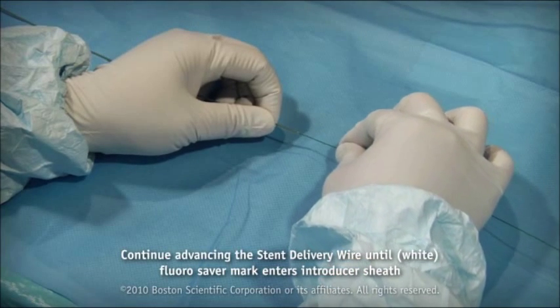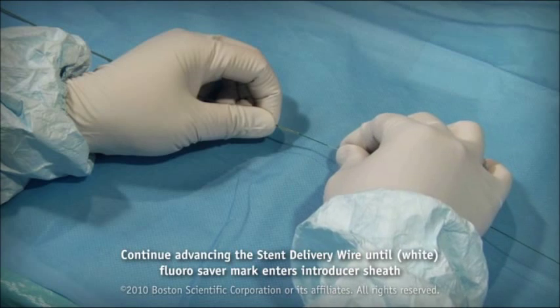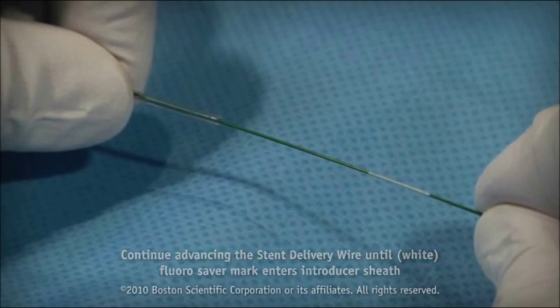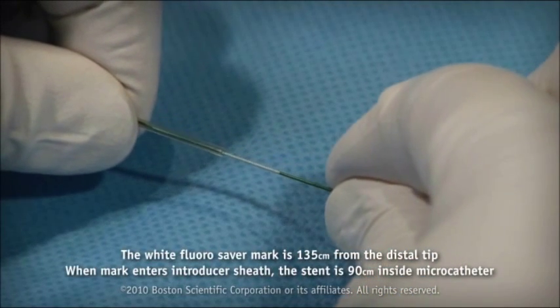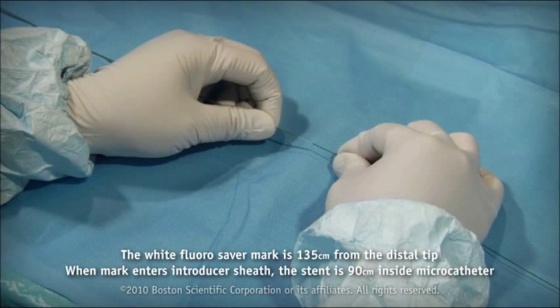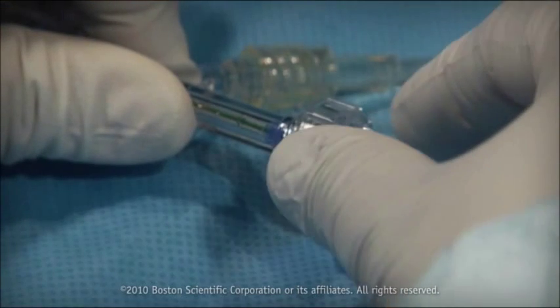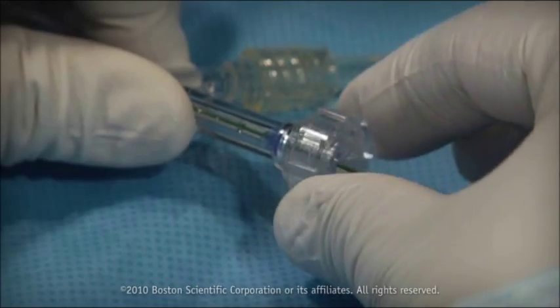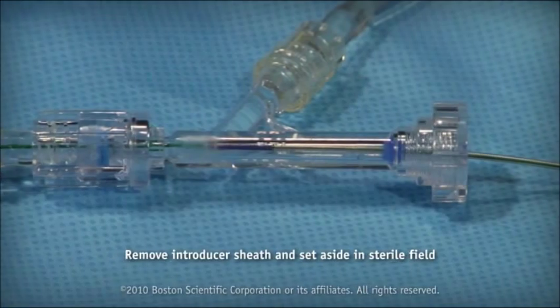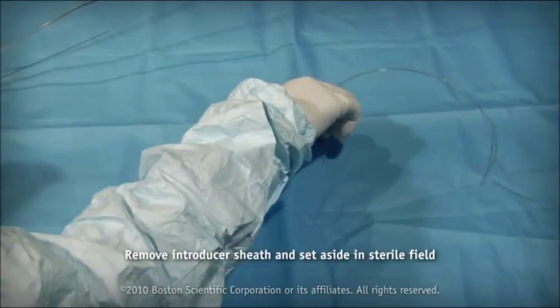Continue advancing the stent delivery wire into the microcatheter until the white fluoro saver mark enters the introducer sheath. The white fluoro saver mark is 135 centimeters from the stent delivery wire distal tip. When the white fluoro saver mark enters the introducer sheath, the stent is about 90 centimeters inside the microcatheter. Loosen the RHV. While holding the stent delivery wire fixed in place, remove the introducer sheath. Set the introducer sheath aside in the sterile field for later use in the procedure if necessary.